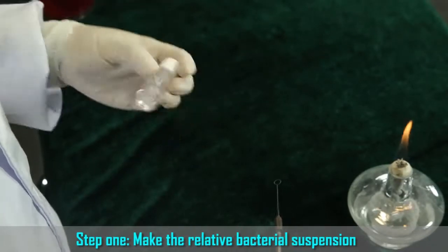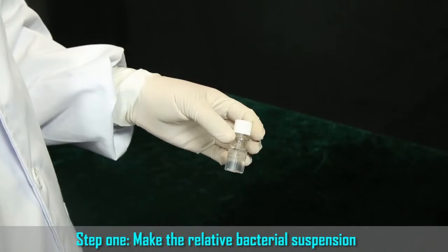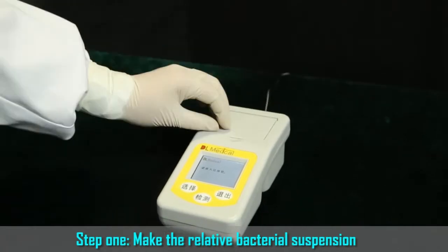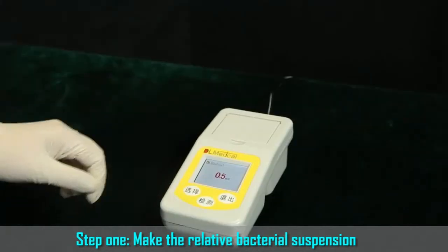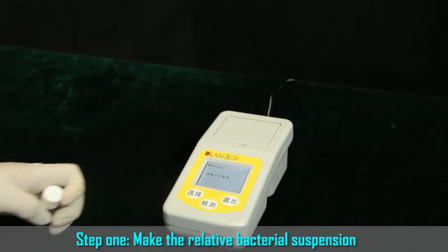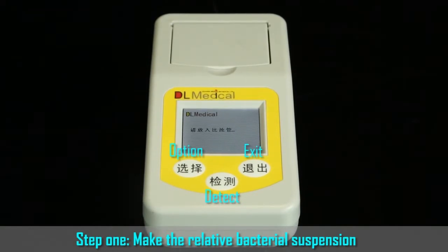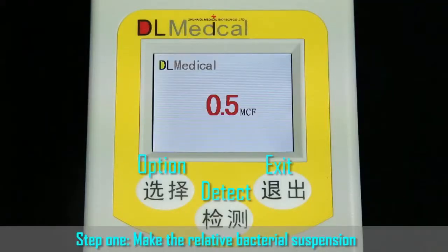G. Shake the diluents bottle and mix the bacterial suspension. H. Use a turbidimeter to measure the turbidity of the bacterial suspension. Place the diluents bottle into the well and press Detect. Take out the diluents bottle from the well and press Exit. The bacterial suspension can be diluted with sterile physiological saline solution until it reaches the needed turbidity. The DL96E test card needs the 0.5 McFarland standard bacterial suspension.